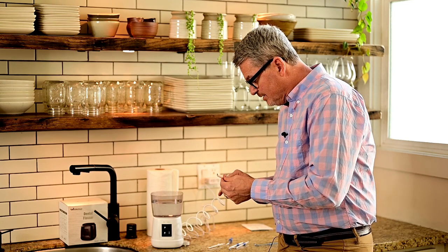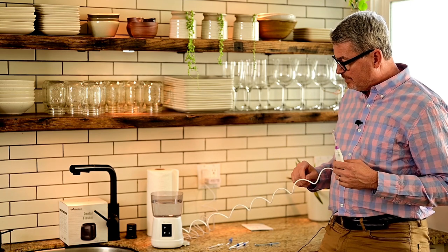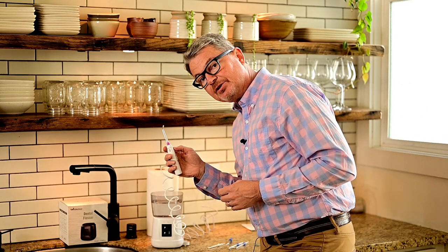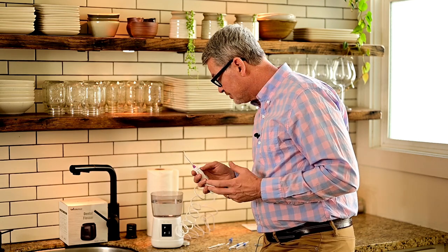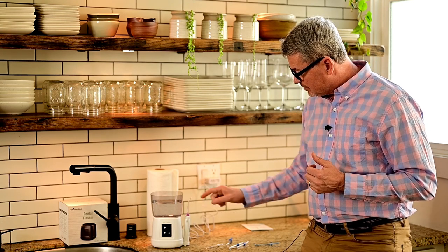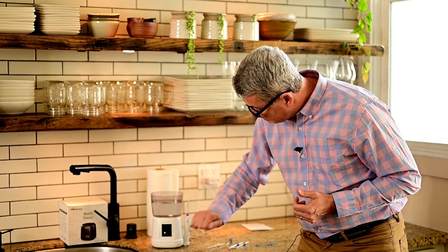My other problem with this device is the tension on this cord. It should be longer and the tension shouldn't be so great, because you really have to stay close to the machine to get the tension off your hand. If there's a lot of tension on your hand, it's going to affect your dexterity. That's the same problem with all the other water flossers out there. Make sure you store the device so it's pointing up, then turn it off.